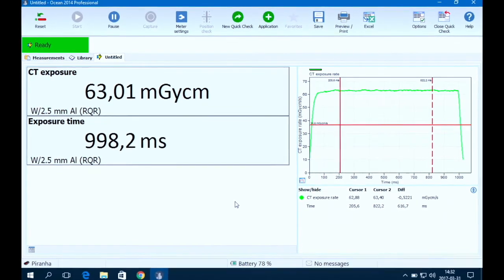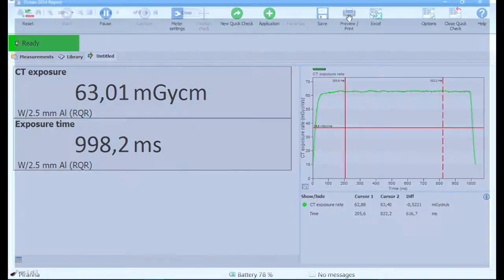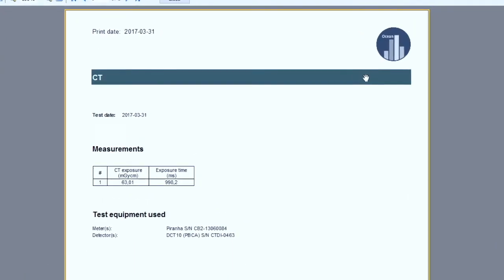Repeat this for all your kilovolt and collimation settings. If using Ocean Professional, you can create your own template and report.